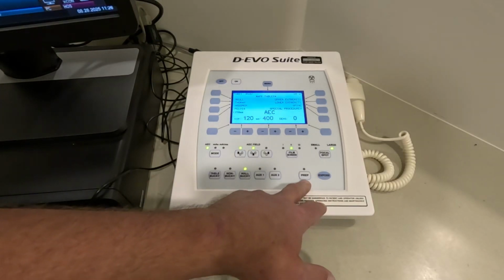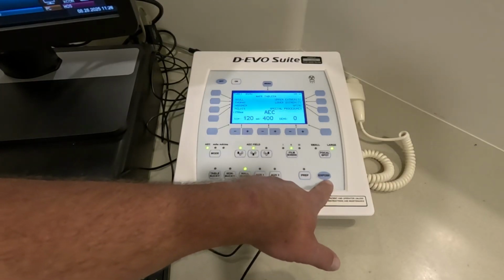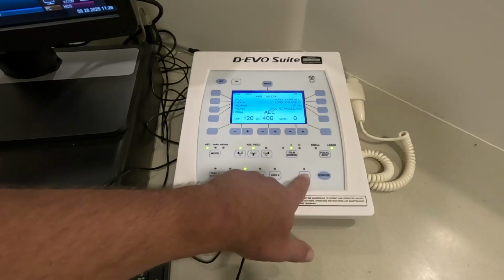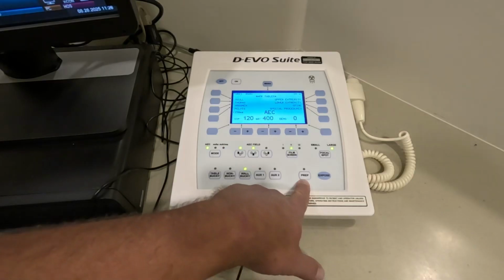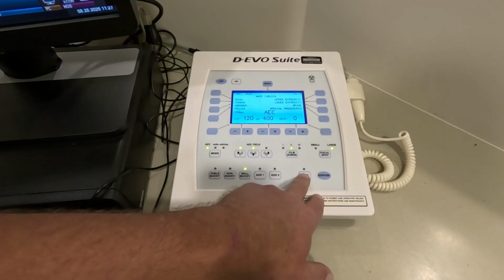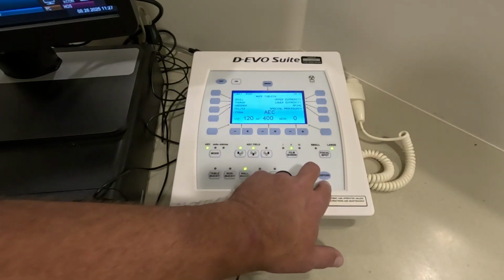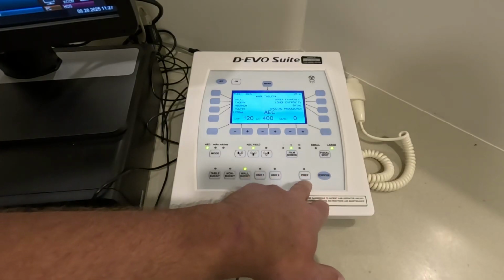Prep just heats the filament and spins the anode. Expose is where we actually make x-rays. If somebody says get on the rotor, that's what they're talking about, the prep button. Sometimes if you're trying to take a chest x-ray on a baby, you need to hold that prep button down and wait for the baby, who's probably crying, to make that inhalation before you make your exposure. So you need to know when it's appropriate to have a long prep time. It's rarely appropriate, but sometimes it is.